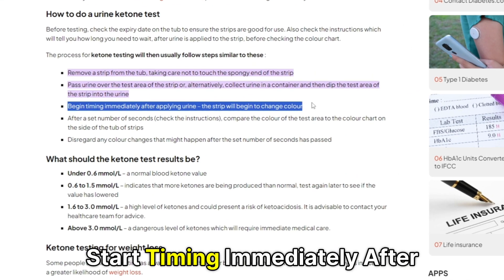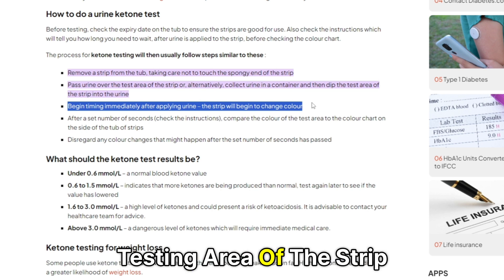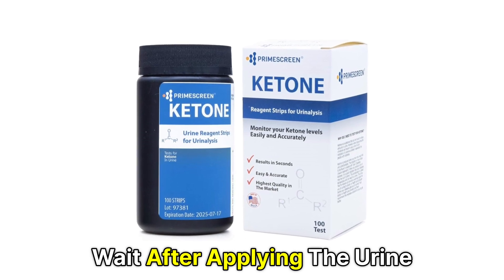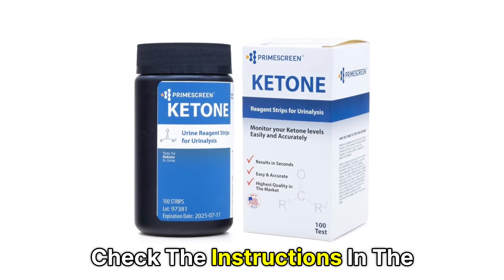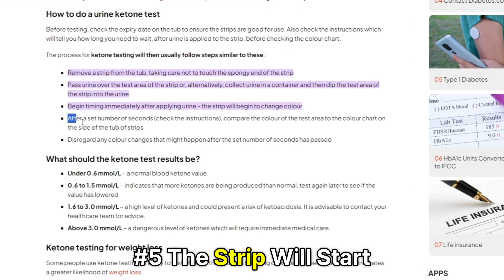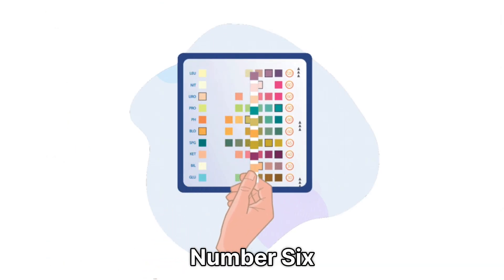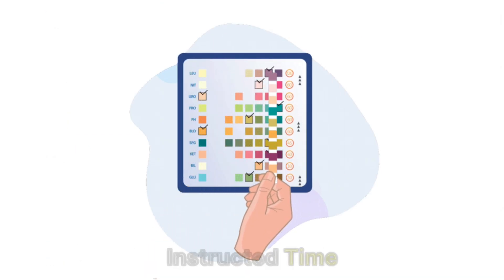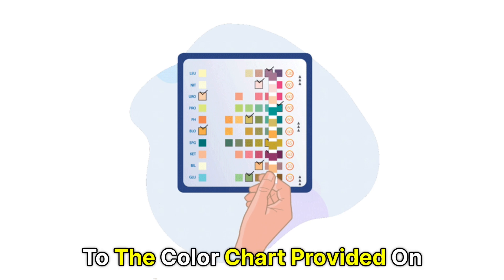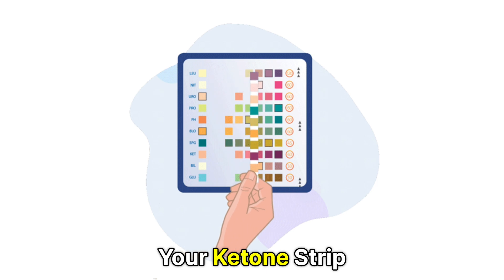Number 4: Start timing immediately after you've passed urine over the testing area of the strip. To know how long you should wait after applying the urine, check the instructions in the manual guide. Number 5: The strip will start changing color with time. Number 6: After waiting for the instructed time, compare the color of the strip to the color chart provided on the side of the container of your ketone strip.